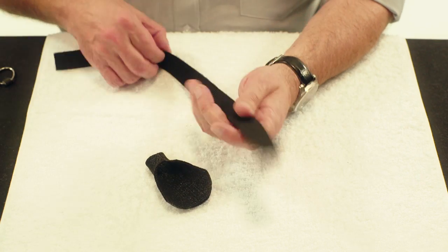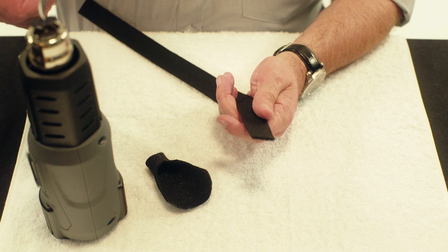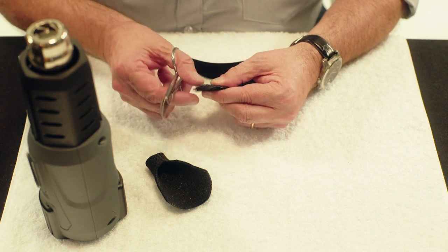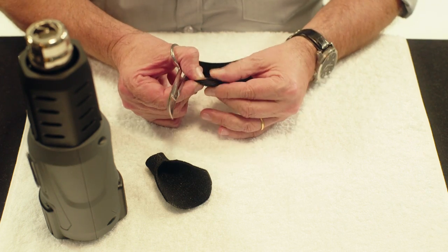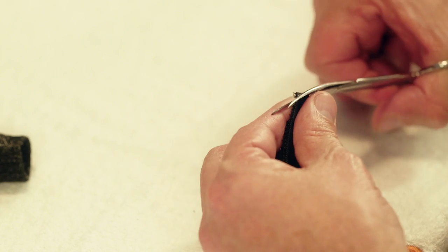Take a large piece of 25 mm wide elastic Velcro loop and a small piece of self-adhesive Velcro hook. Heat the self-adhesive side of the Velcro hook and stick it to the other side of the Velcro loop. Round the corners of the strap.